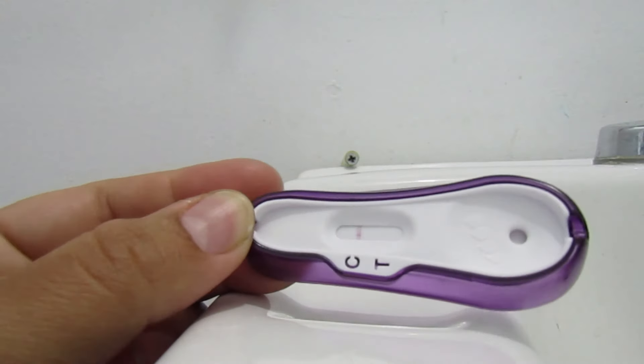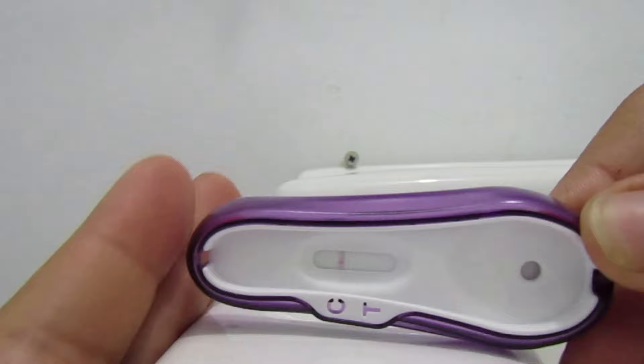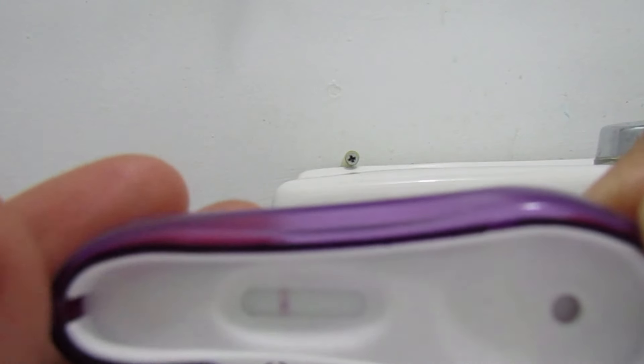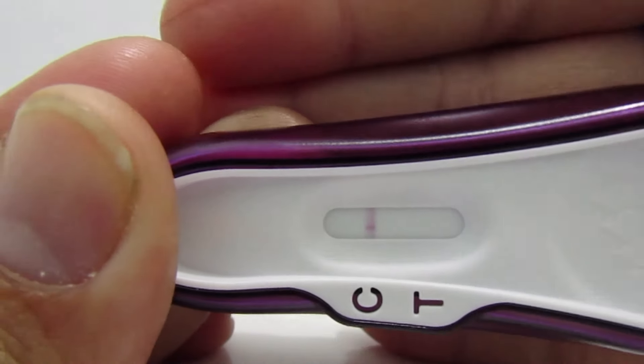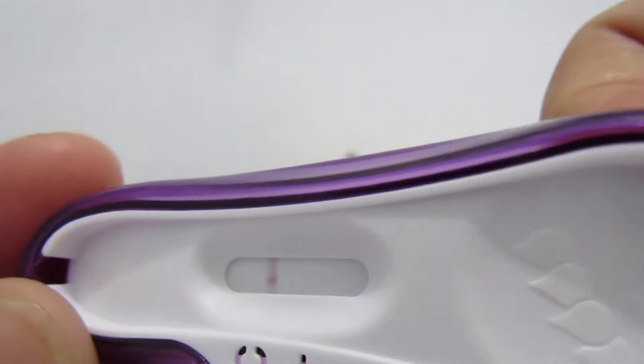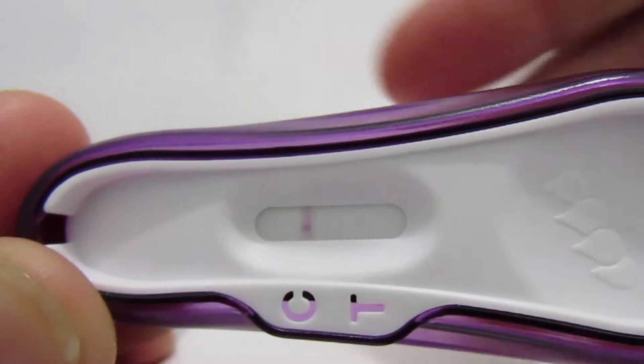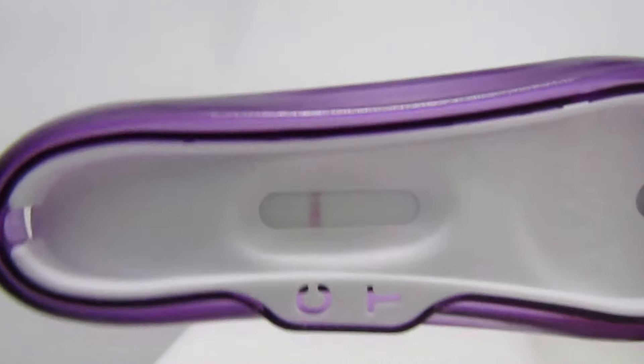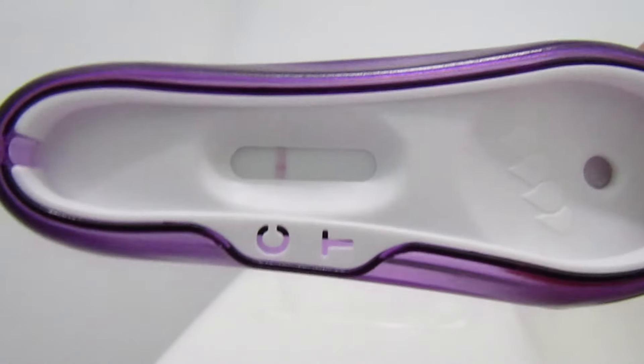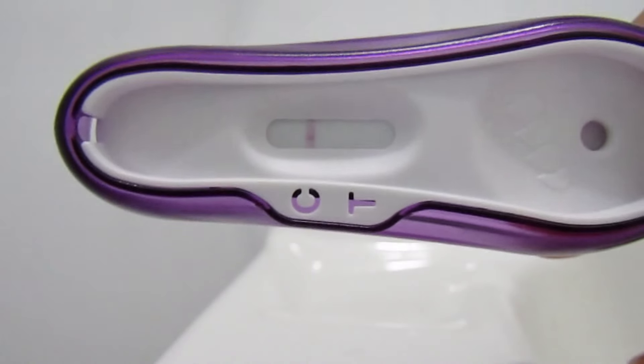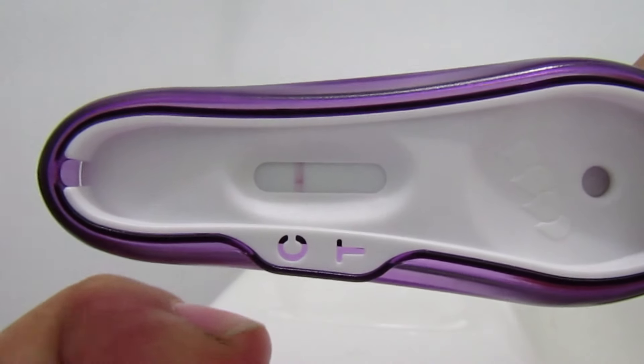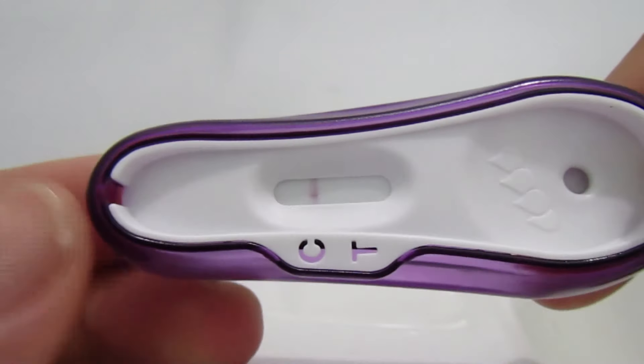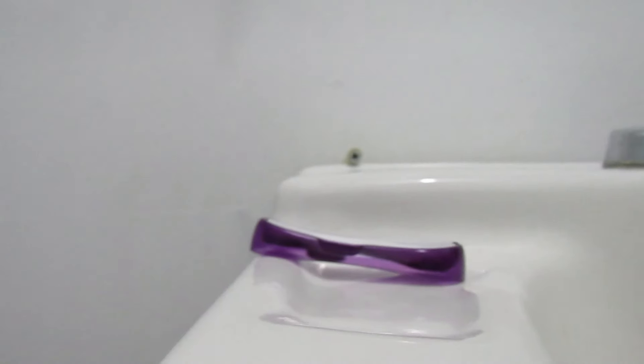All right, let's go ahead and check out this test today. It has been probably about 5 or 6 minutes now. It's looking negative right off the bat. I'm not seeing anything of color. I would think by now something of color would show if I were to be pregnant. I'm going to check it out from a different angle.